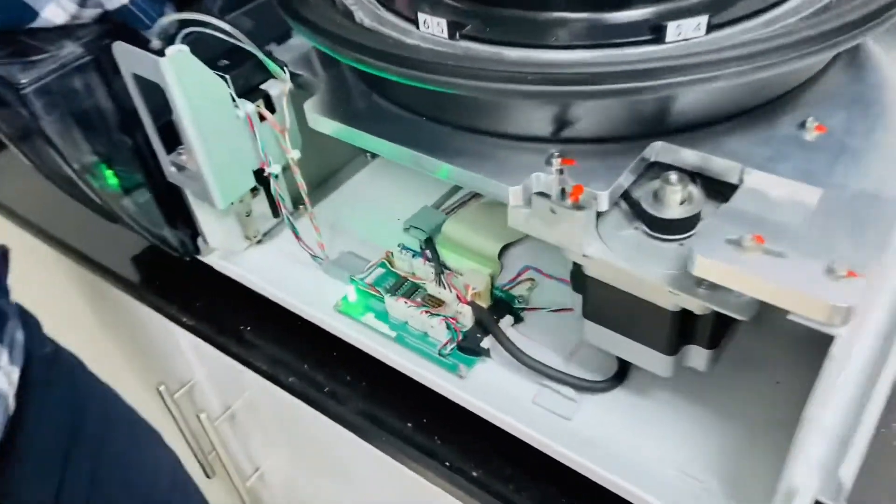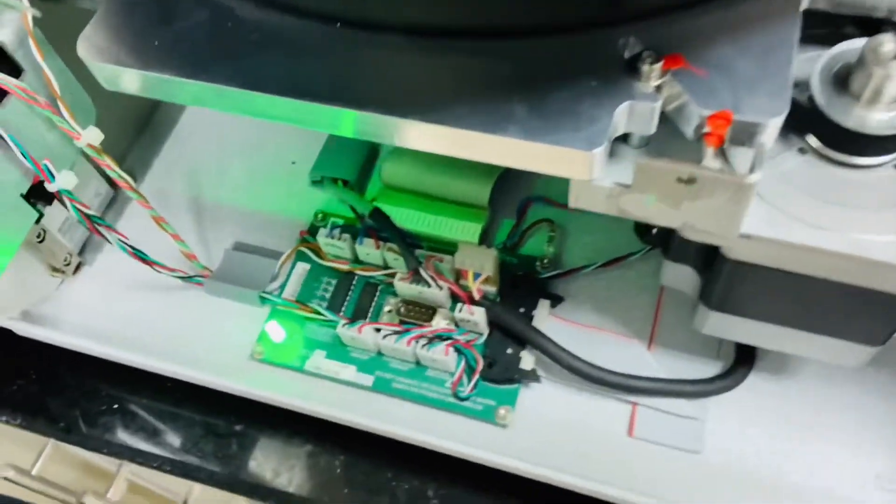So guys in this clip you can see that the PCBs are all manufactured by Diasys Germany.